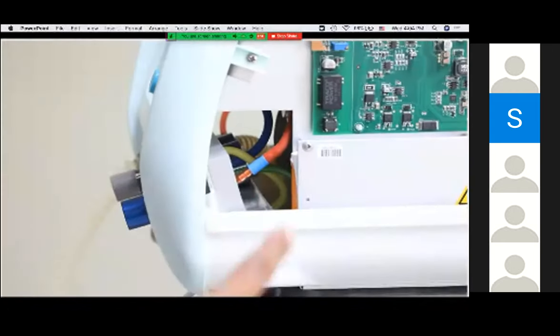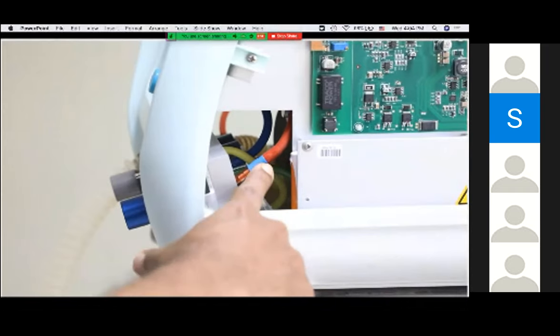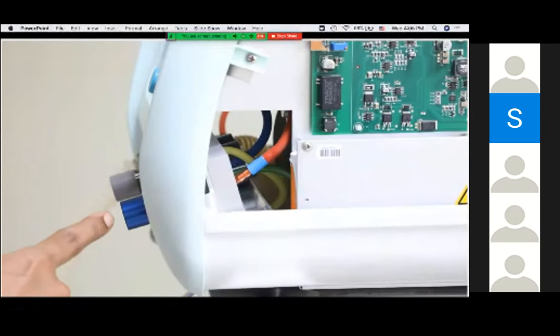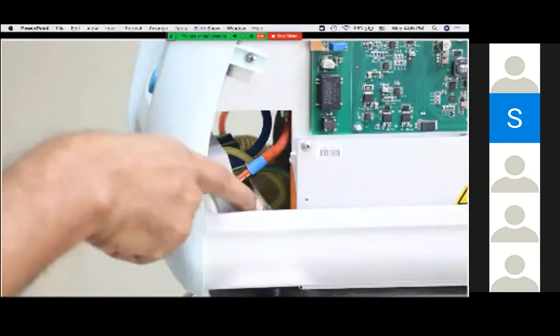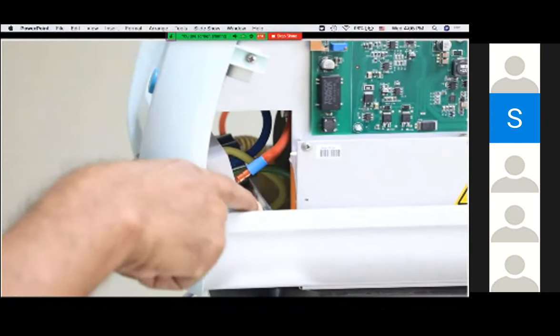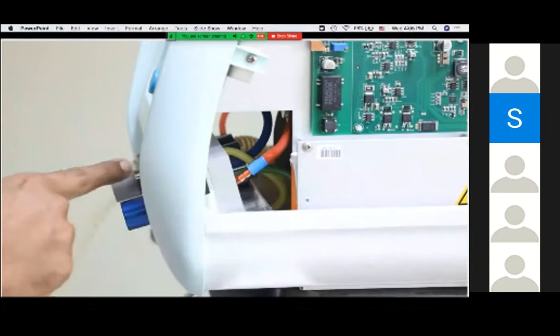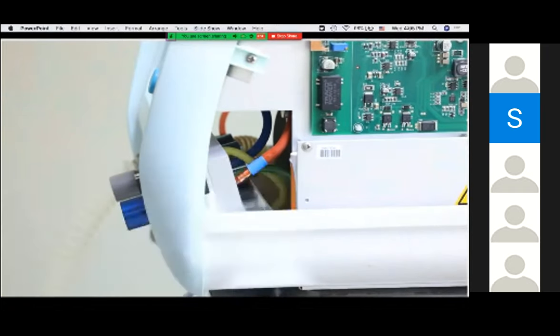The oxygen levels of the mixed inspiratory gas are sensed by the oxygen cell. Following this, the gas enters the inspiratory tubings. The inspiratory gases come through the red tube and enter the inspiratory limb of the patient circuit. The pressure sensor is connected to the proximal port through a green tubing, and inside there are two safety valves.